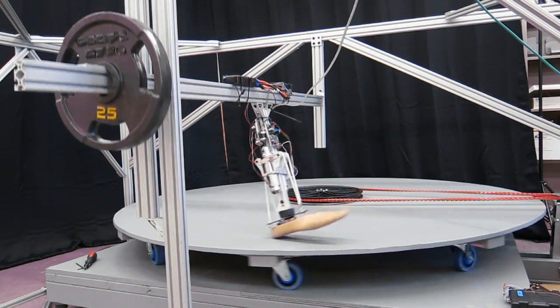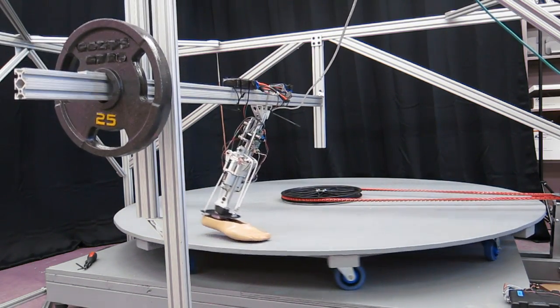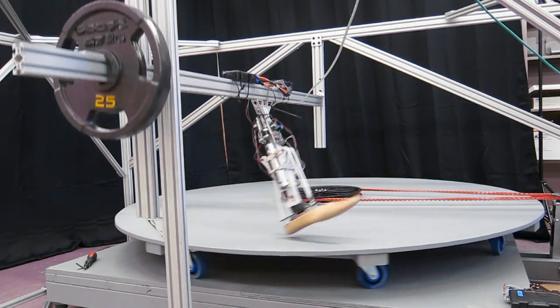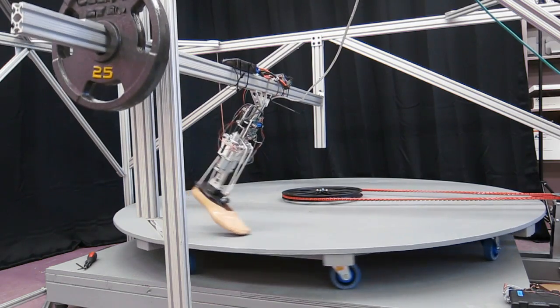This feature makes the artificial legs perform more similar to human biomechanics. It will increase mobility in amputees, resulting in improved emotional and physical well-being.